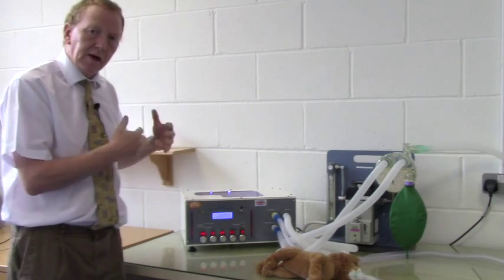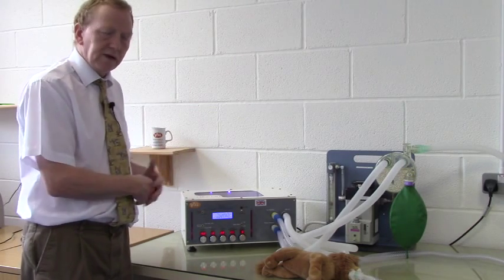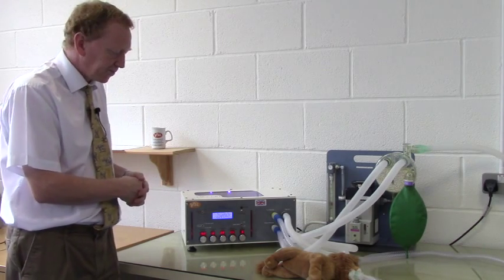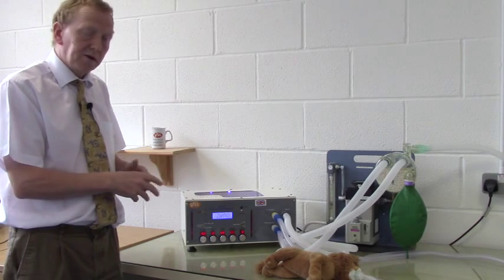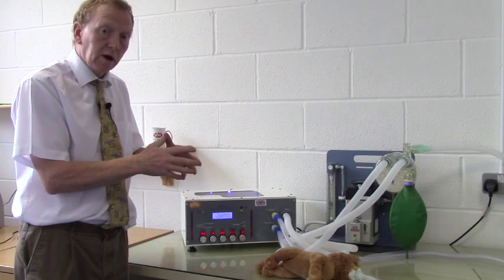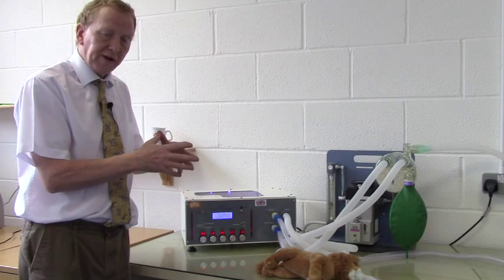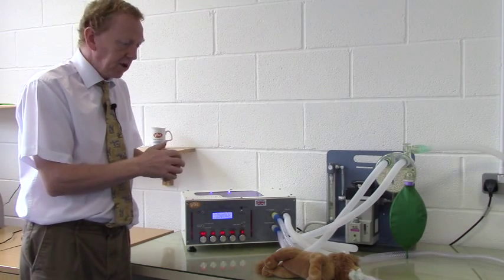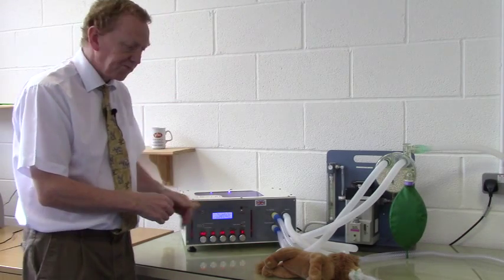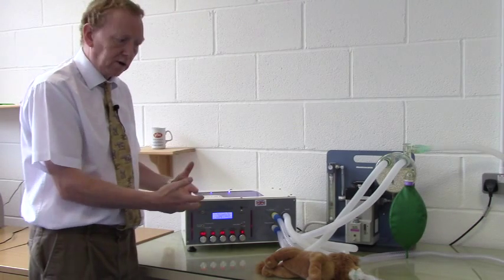So this is volume cycling mode. A preset volume is delivered, and at the end of the volume, when the volume has all been delivered, the animal is allowed to breathe out and the process repeats. In volume cycling mode, the ventilator wants to deliver the whole volume — it has no concept of the compliance of the animal, or of the back pressure, or of reaching a certain pressure. The only caveat is that our maximum working pressure is set at 25, and if the volume couldn't be delivered without rising above 25, an alarm will sound.